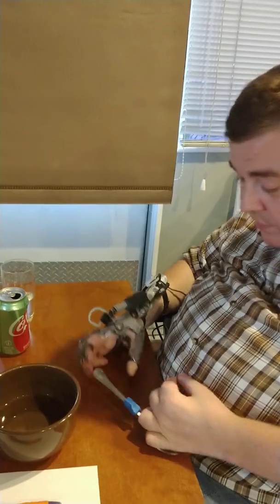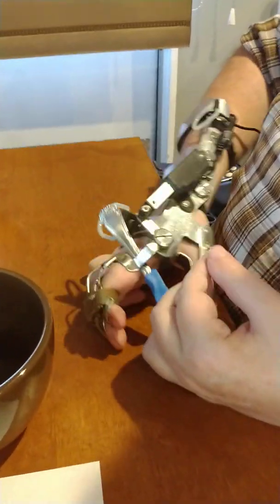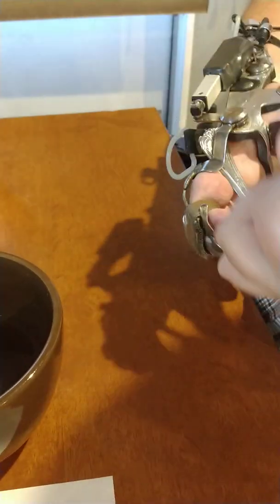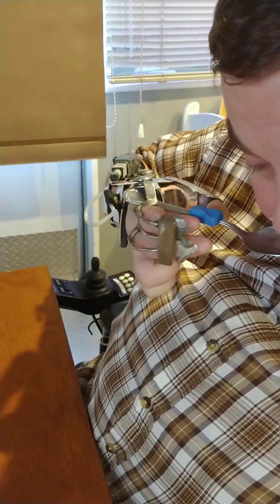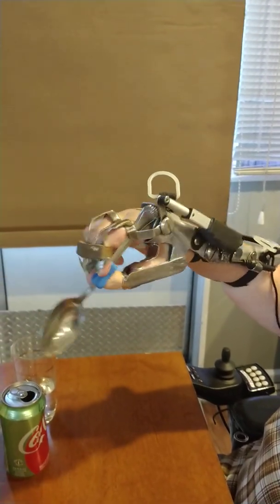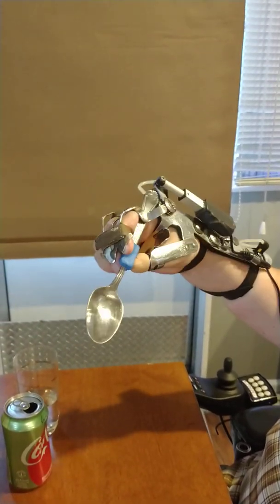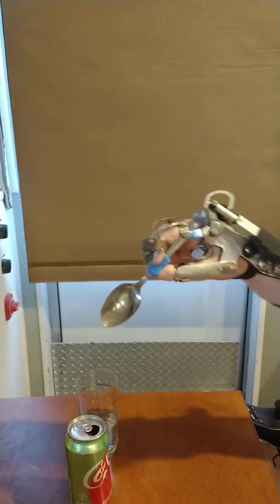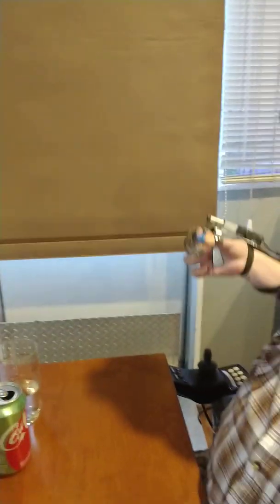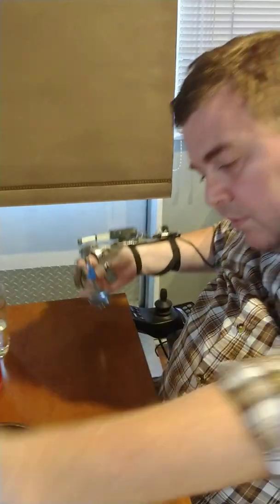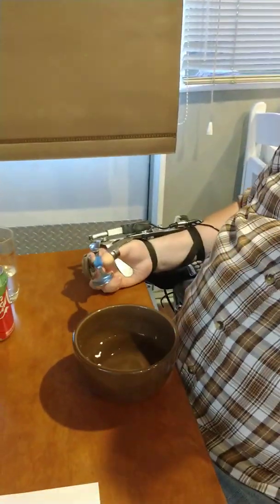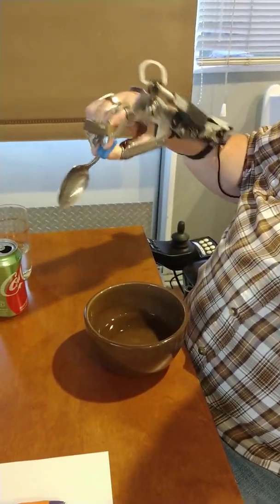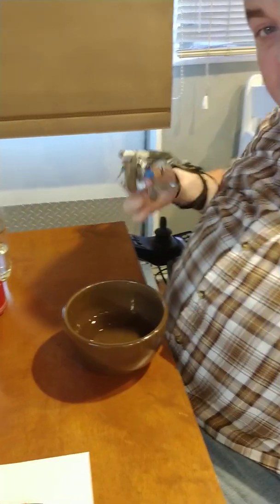Similarly spoon, and we'll see the difference here how we do this. Slides into this little pocket, so now I've got a stabilization point. Somebody can even hand me it by just tucking it into that pocket. Line up the fingers with the thumb and now I've got a good three-point grasp there. So that three-point grasp is what we're missing with the Neo Mano. Admittedly I've got a shortened thumb that was amputated when I was a year and a half old, so I have a little thumb prosthetic thumb tip extension that would need to be added for the Neomano as I talked about. But even with the thumb tip in there, the whole thumb just needs a little more reinforcement I think for anybody.